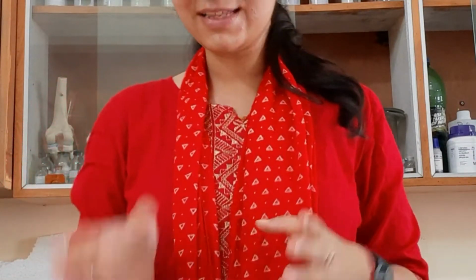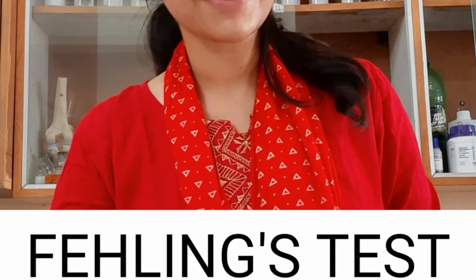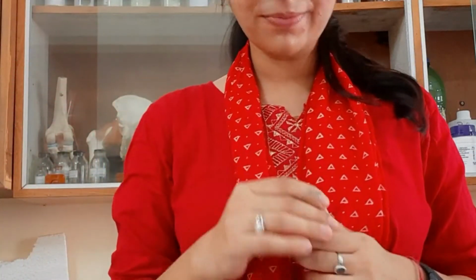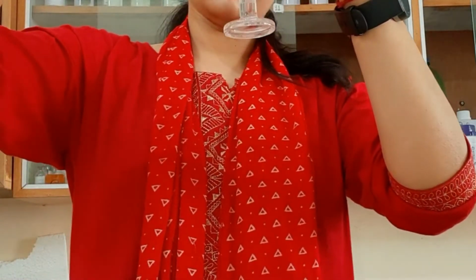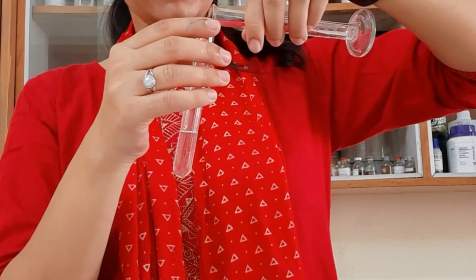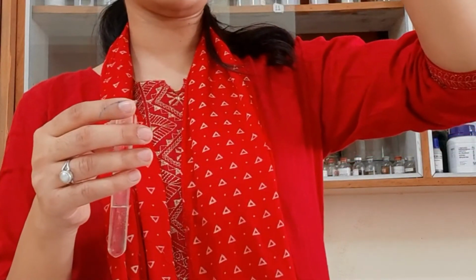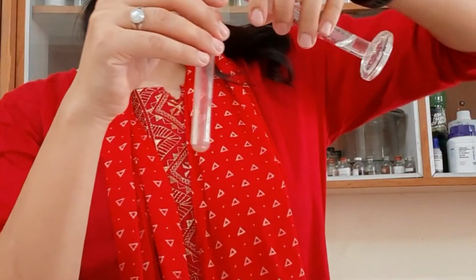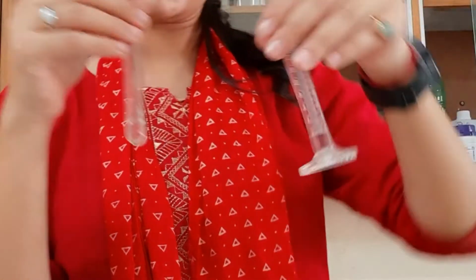So now let's perform another test, that is our Fehling's test. The second test for today's experiment is Fehling's solution. The procedure is the same. I'm going to take another, new test tube, and first is the urine sample. First you have to measure 2 ml of urine sample. So here we are measuring 2 ml of urine sample, and here is our urine sample, 2 ml.